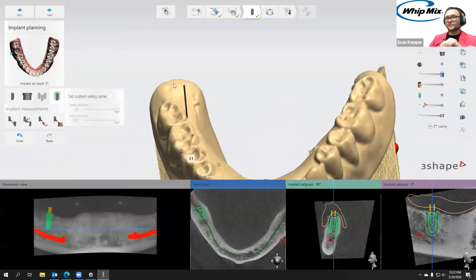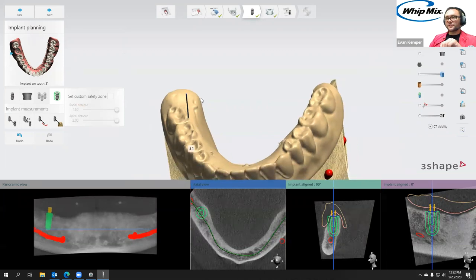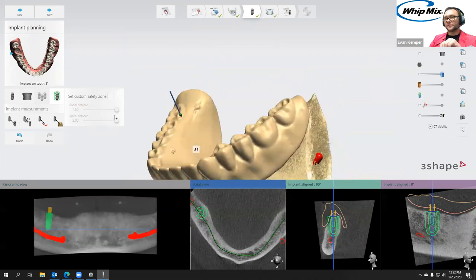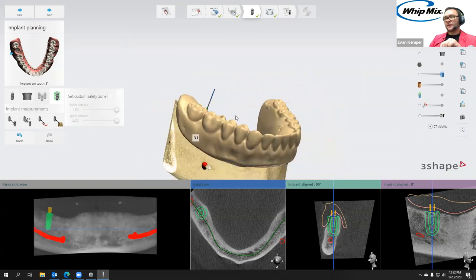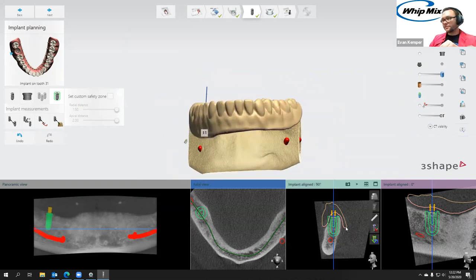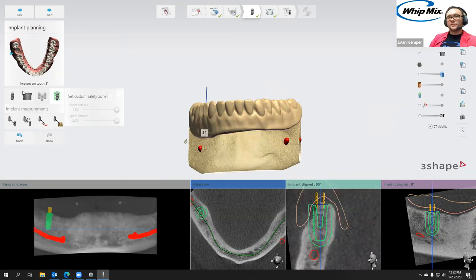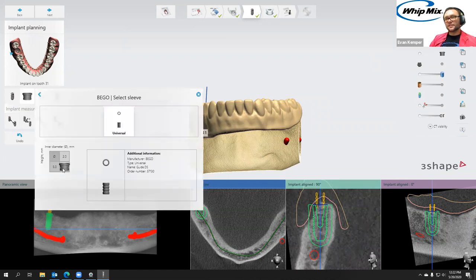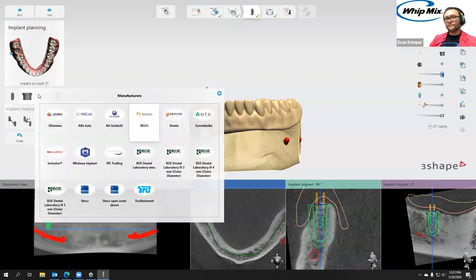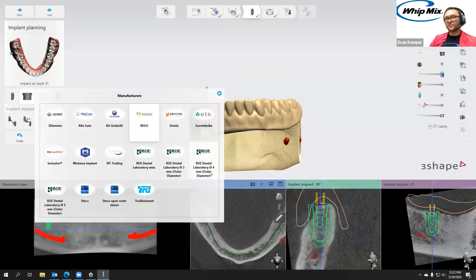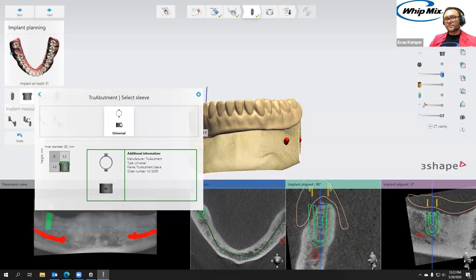You can see that's the screw hole if you're using a non-angled screw — keep that in mind for either the provisional or the final. The next thing I could do is move on to the next implant, but I also like to go ahead and take care of the sleeve while I'm here, at least initially. With the Dentium implants, they don't provide a sleeve library inside theirs, so I would have to pick one of the other options.